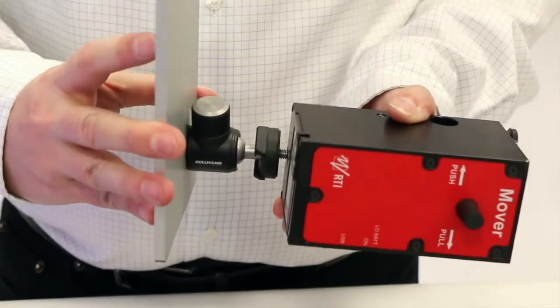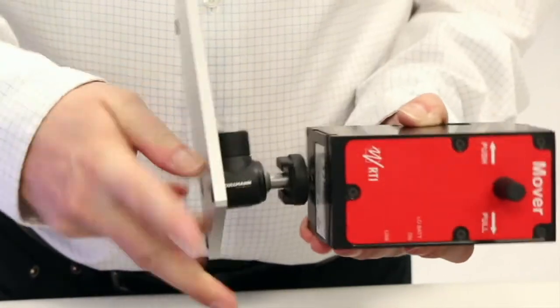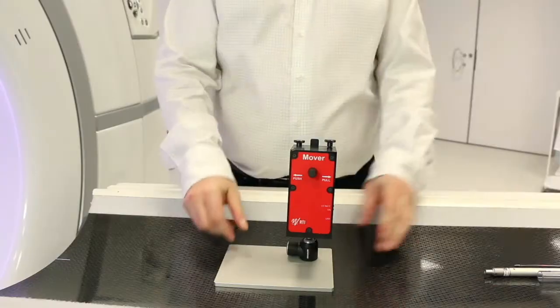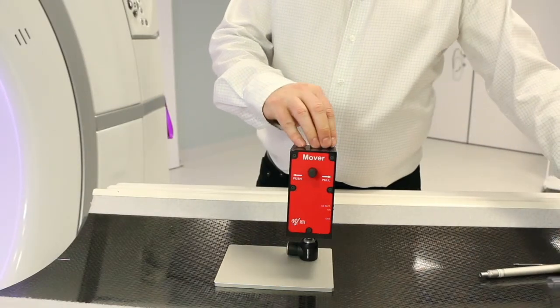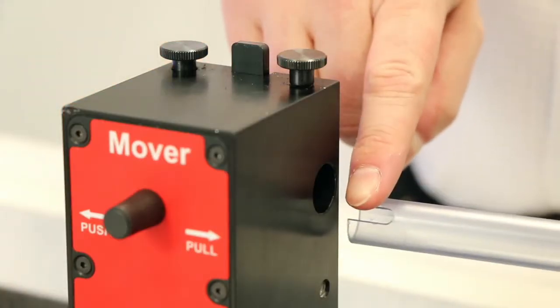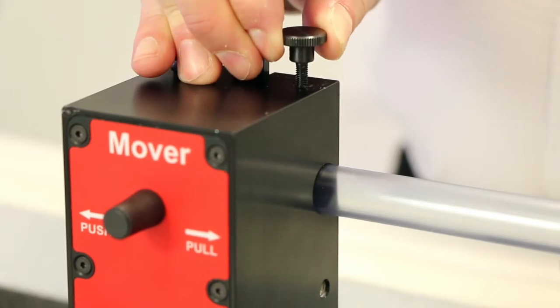Mount the mover onto the base plate. Attach the protection rod by pulling up the pin. Position the rod with the slit on top on the mover towards the pin.